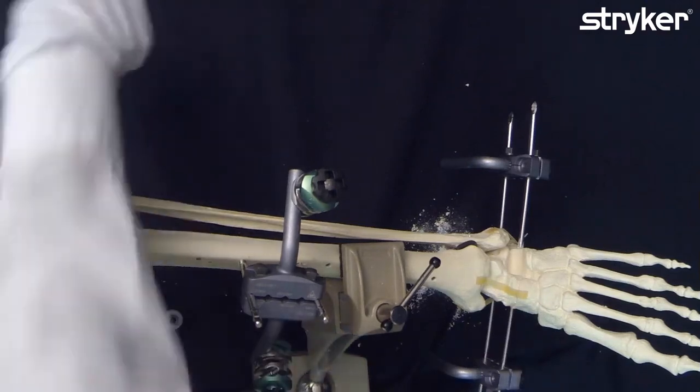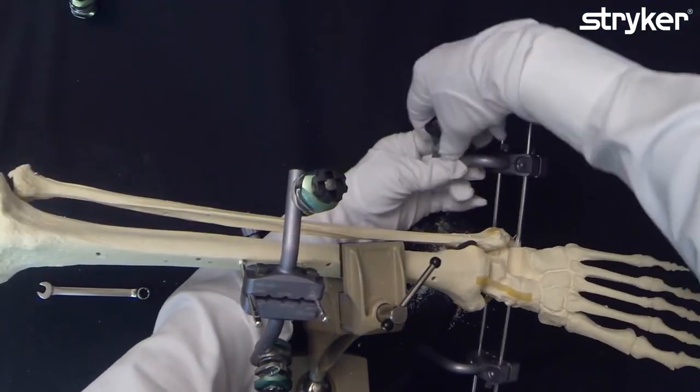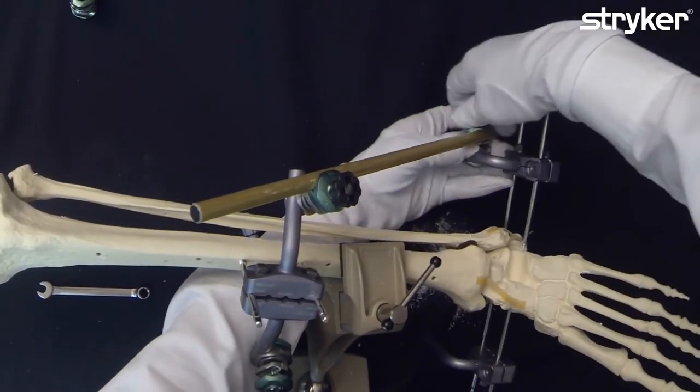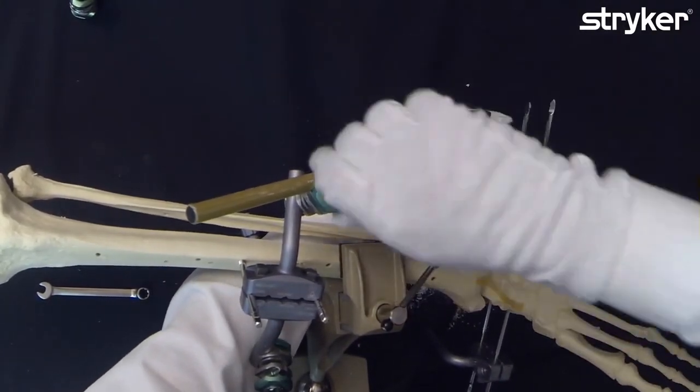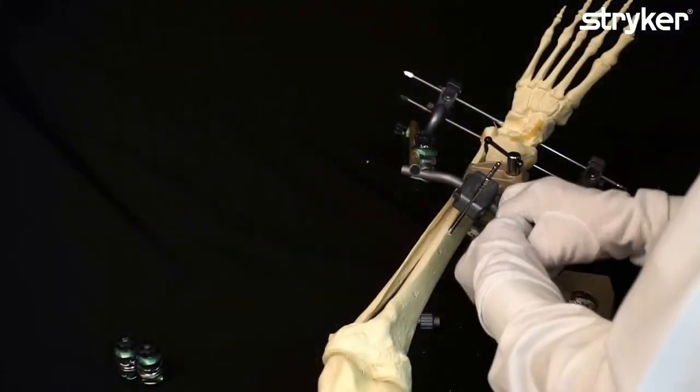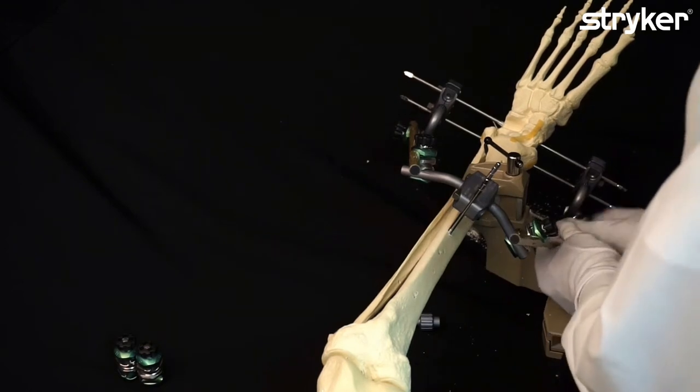Now we connect the posts. Pre-tighten it, which is very easy done and simple because of these fast and ergonomic thumbwheels. The other side.